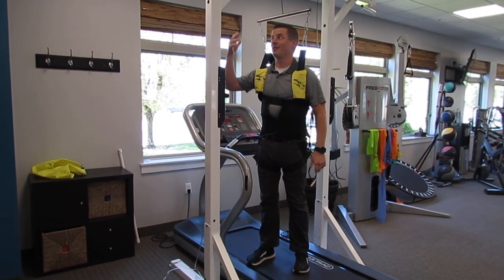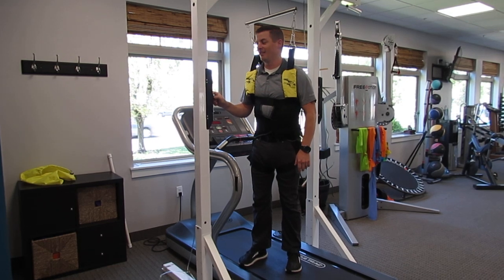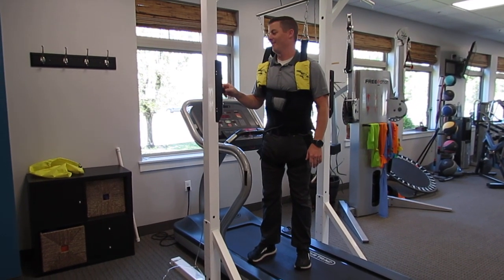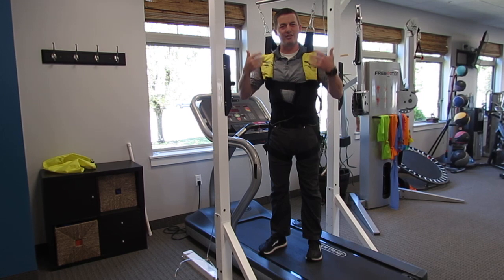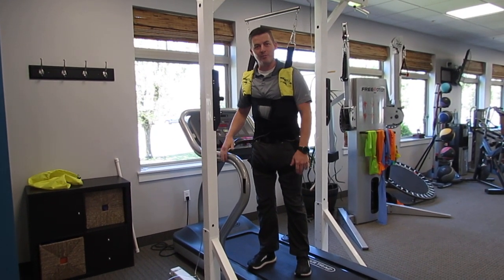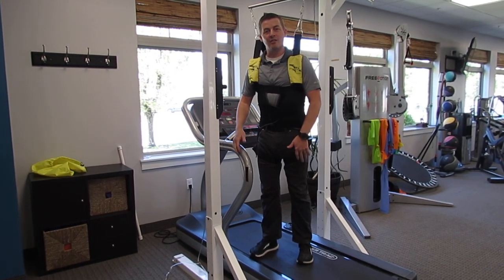It's pretty simple — it's a harness, a frame, and inside there's a pneumatic system. I didn't build it, so I don't know exactly what it looks like. Right now I have 40 pounds taken off of my body, so if I were to walk on the treadmill, I could feel what it would feel like to have 40 pounds less weight on my knees.